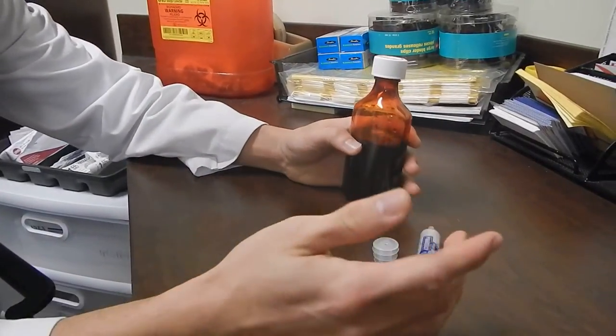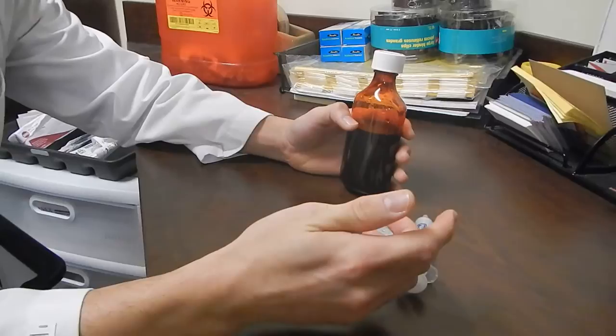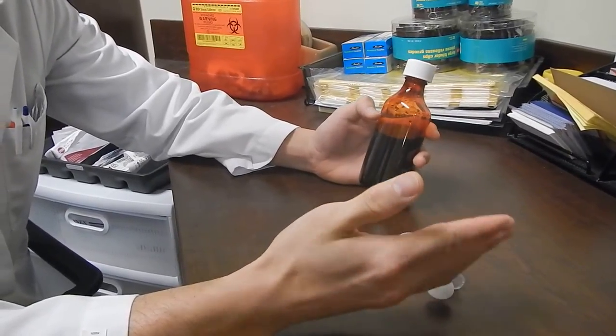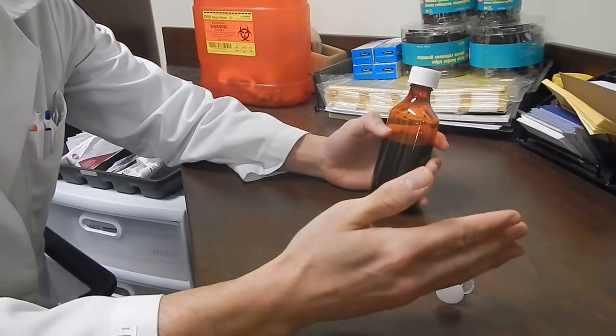With these two devices, you'll be able to accurately measure out the dosage your doctor has recommended to take and it also helps prevent spills and any other disasters.